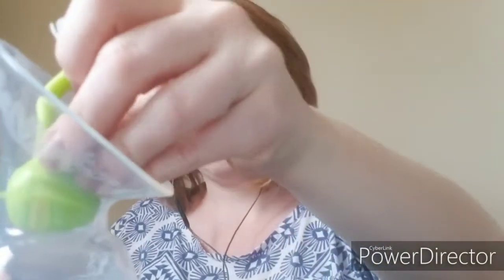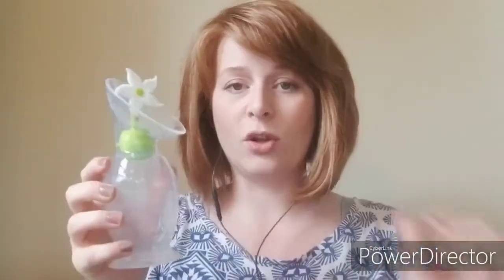Very cool. So let's pop this little thing open — look, it's so cute. The idea with this is you stick the pump on the nightstand, then you shove the flower stopper down in and you have yourself a seal. So again, you're not going to spill. You can stick it in the fridge real quick if you don't have time to put it in a bag and deal with all the rigmarole that comes with pumping and nursing.